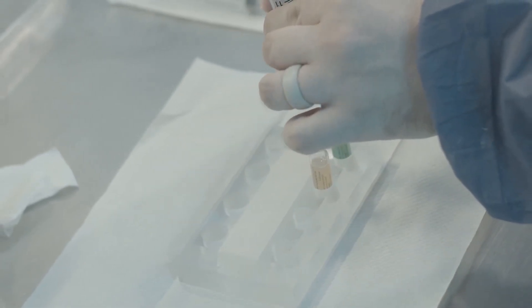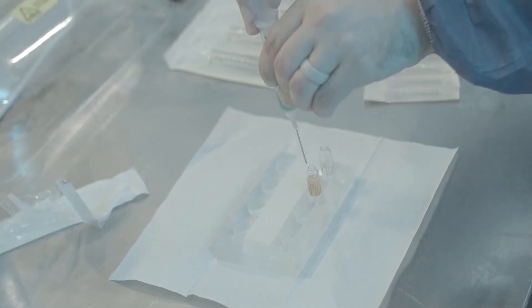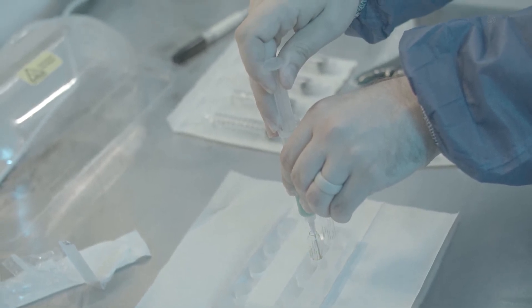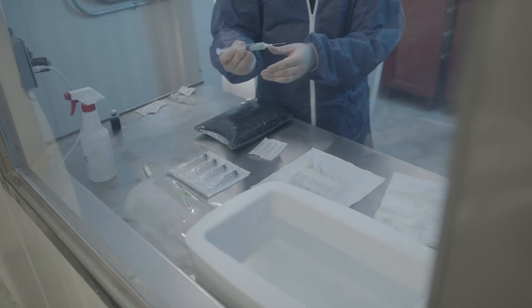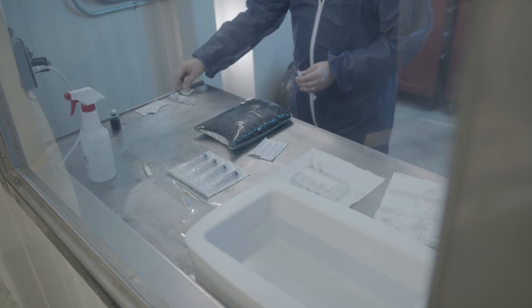If this occurs, discard the needle, syringe, and contents. Do not risk possible contamination of the vaccine and diluent. Slowly draw the contents of the ampoule into the syringe containing diluent — slightly tilting the ampoule will ensure all vaccine is removed. This should take approximately three seconds. Fast drawing or injecting can cause cell damage to the vaccine and reduce its potency. Use of an ampoule holder is recommended to reduce the risk of self-injection and helps ensure a more stable platform for this process.